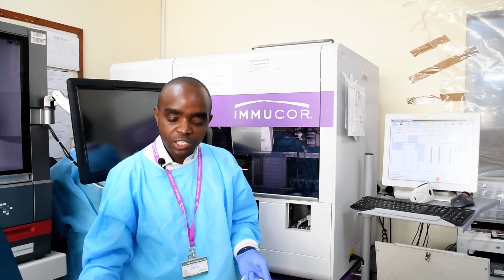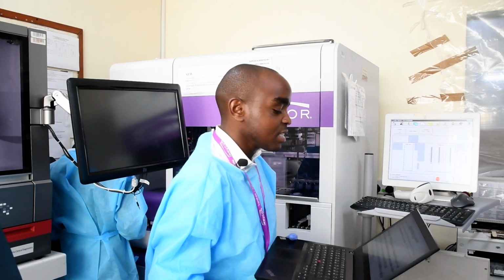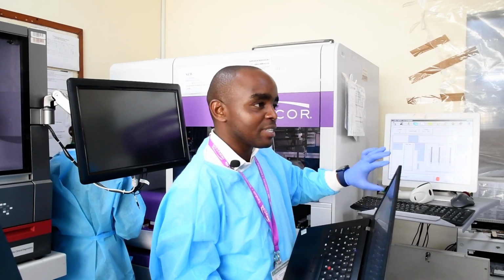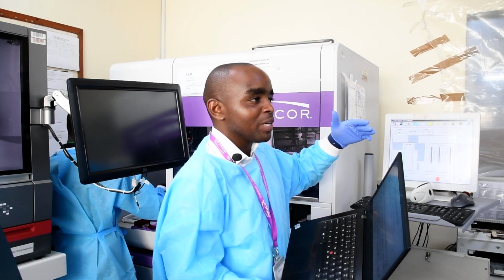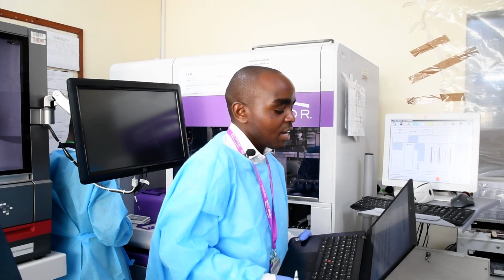IgM, this is what it does. The machine will pick the Galileo plate, and then it will add the PBS, around 50 microliters. Remember, this procedure will use higher volumes of reagents than most of the others because of the serial dilution it needs. So if you are going to run these more frequently, you need to increase your order for reference cells and capture indicator cells.